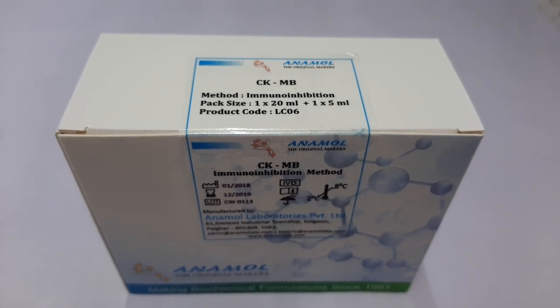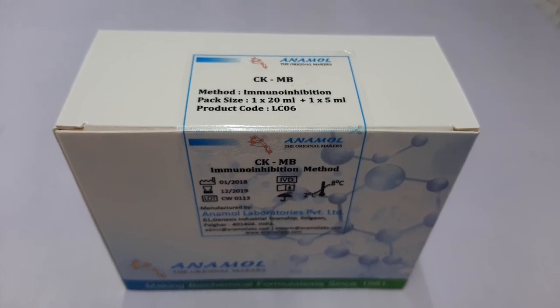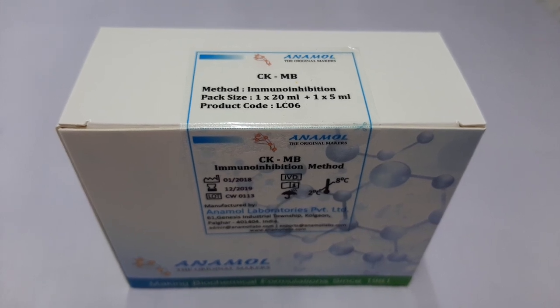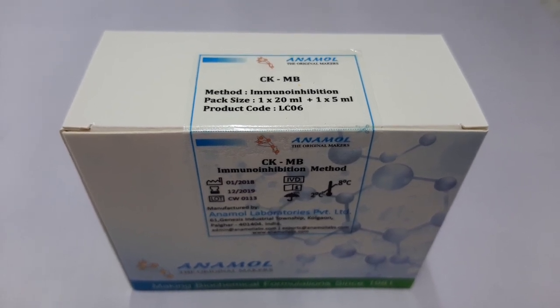Hello everyone. In this video tutorial, we'll see how to perform CKMB test using the kit manufactured by Anamol Laboratories, Pvt Ltd.